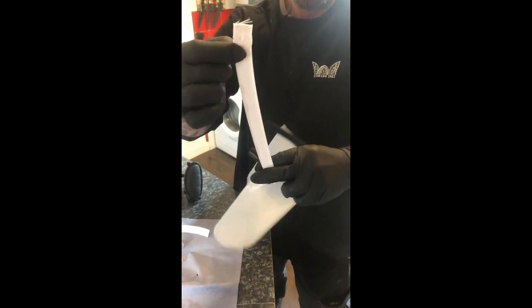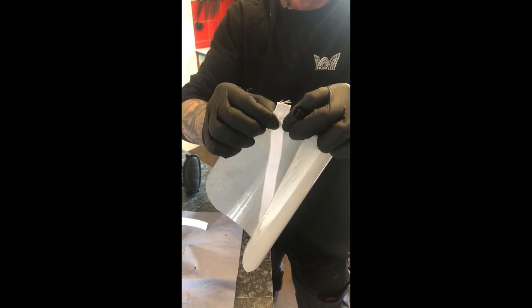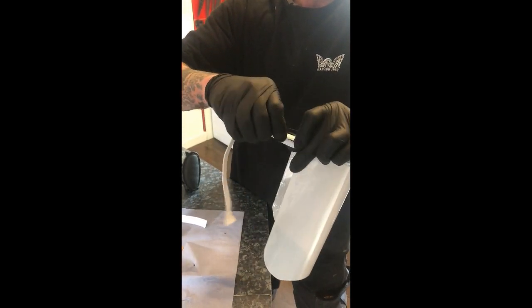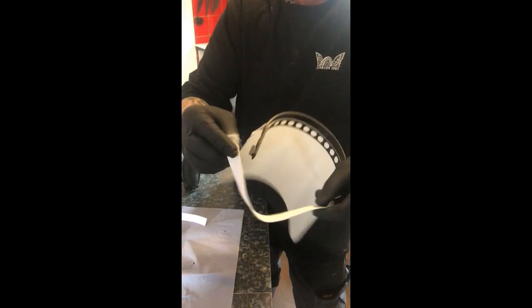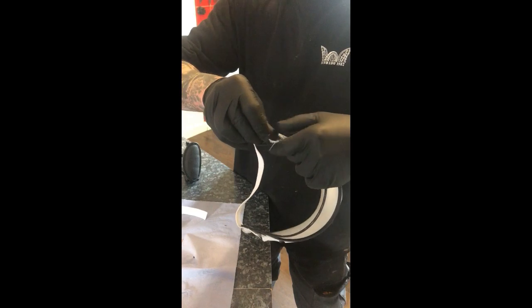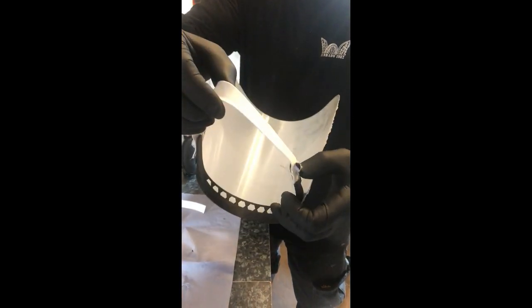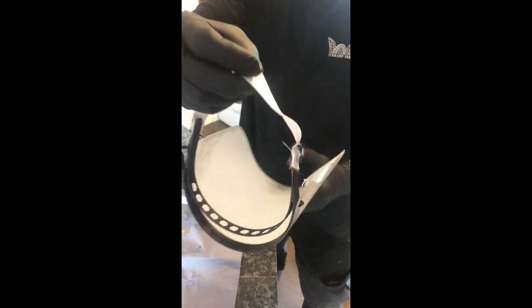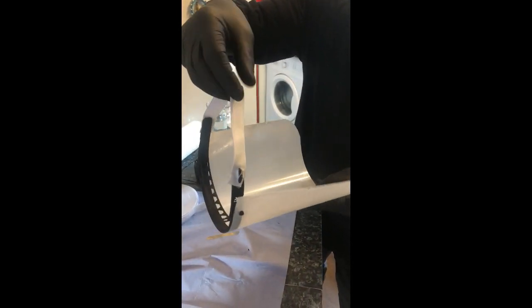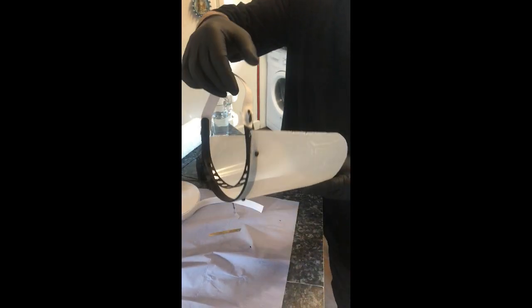We will be cutting the elastic into strips and I have a dressmaker on with it, but for now we'll just be putting rough holes in them. You would put that over one side and that over the other side. At which point you've got a pretty sturdy mask that will sit nice and tight on your head. But feel free to put holes in if you want to change the size of it.